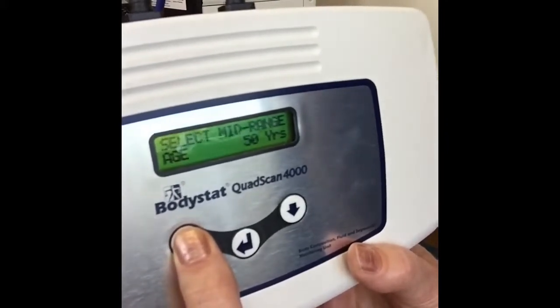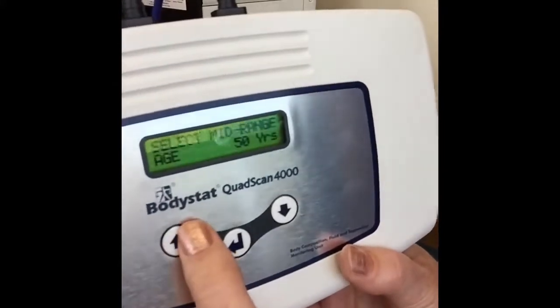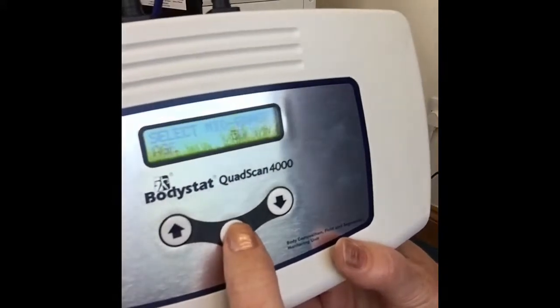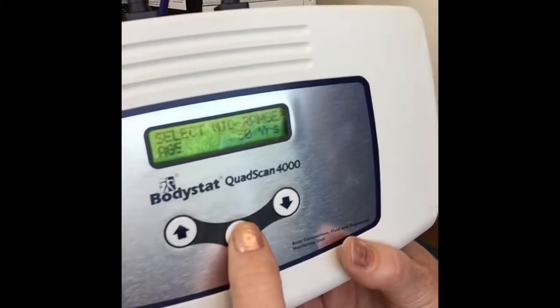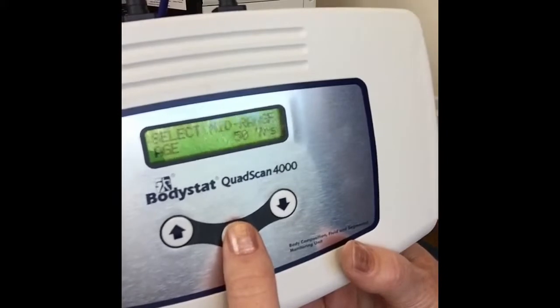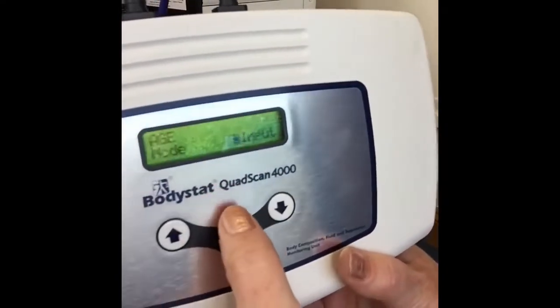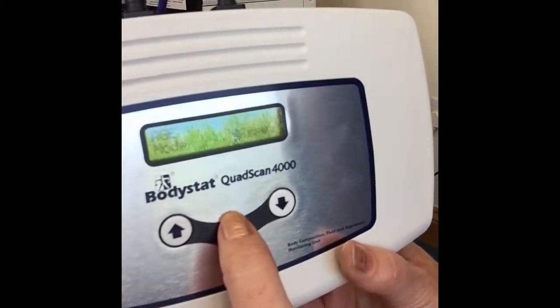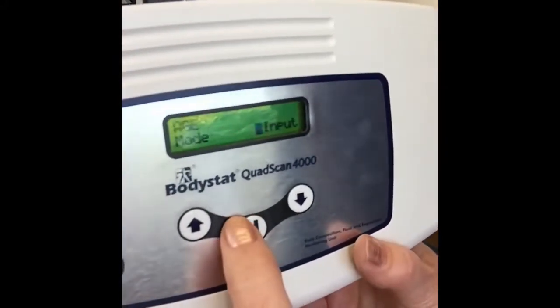Incidentally, the longer you hold the up arrow key or the down arrow key, the faster that change will be through the units. So for example, by selecting 50, that will be 50 years will come up during the time of the measurement as your kind of default age. Now, when you press input, that allows you to change that age at the time of the measurement. So you can change that higher or lower. Just gives you that bit of flexibility at the time of the test.